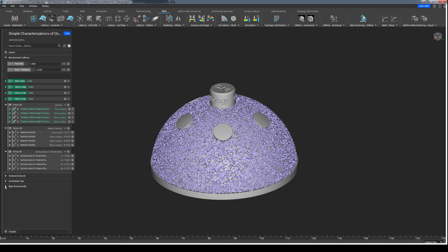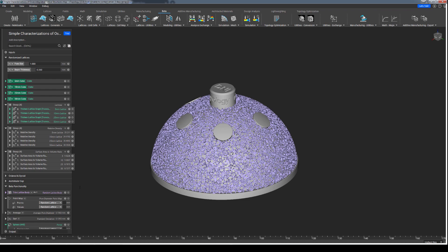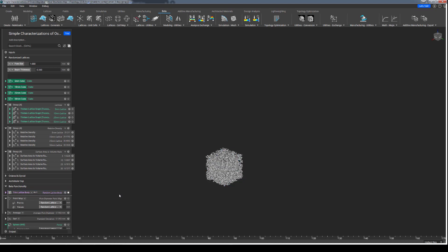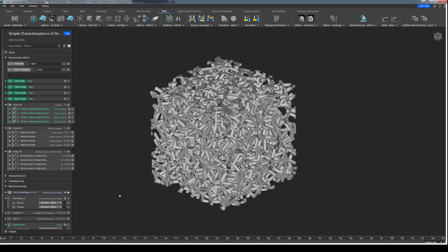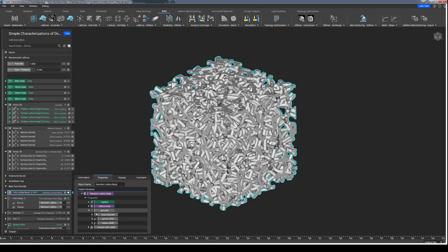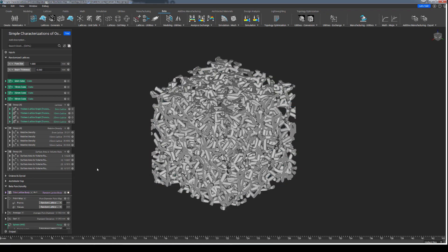We did discuss what the definition of a pore size is and how it can be used to describe a randomized lattice. Entopology is in the process of developing a whole new way to create lattice structures within the software through what we call a lattice body data type. With this lattice body workflow, we enable additional features such as modifiable cell maps, custom unit cells, and even properties such as a measurable pore size. Previously, the pore size value we call out when generating a randomized lattice is a pore size that we are attempting to create and get to. However, with this new lattice body workflow, we can actually grab the measured distribution of pore sizes for a randomized lattice, so there's no longer going to be a guessing process between what your input value is and what is actually being created.